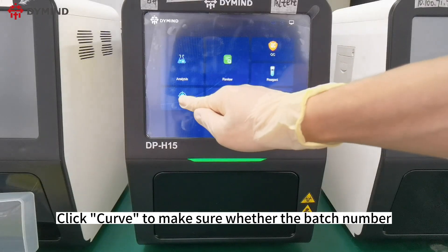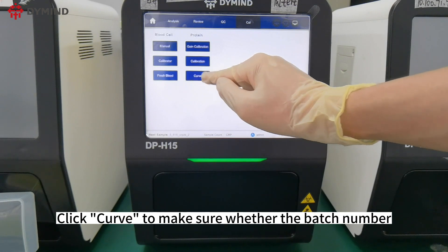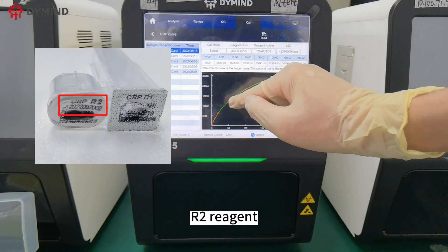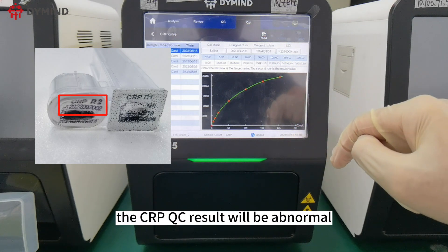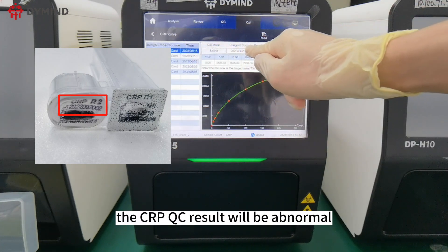Click Curve to verify whether the batch number matches the CRP R2 reagent. If it is not the same, the CRP QC result will be abnormal.